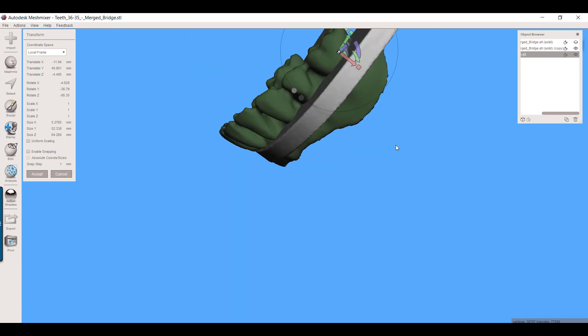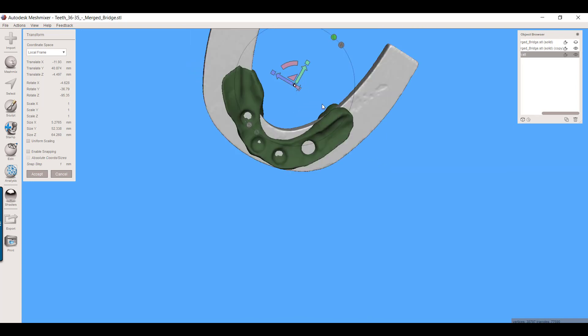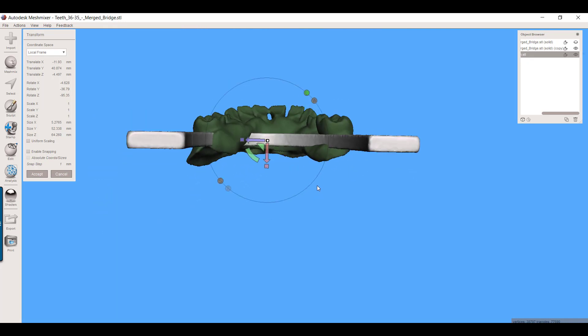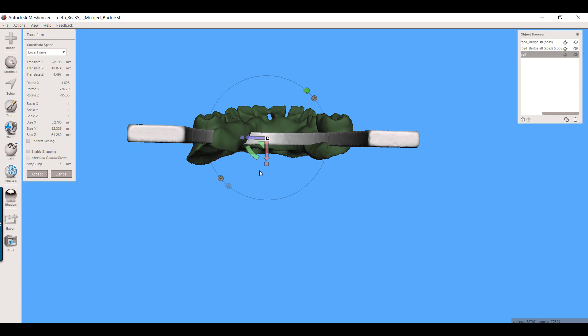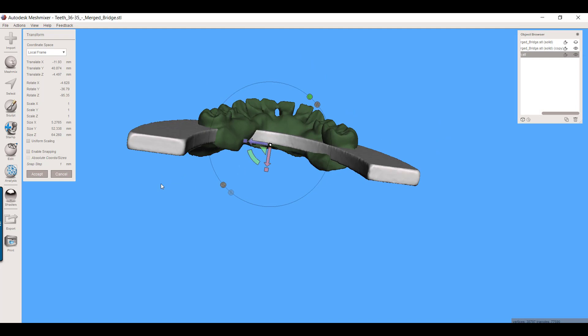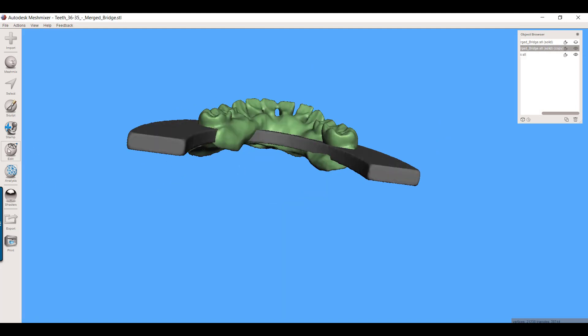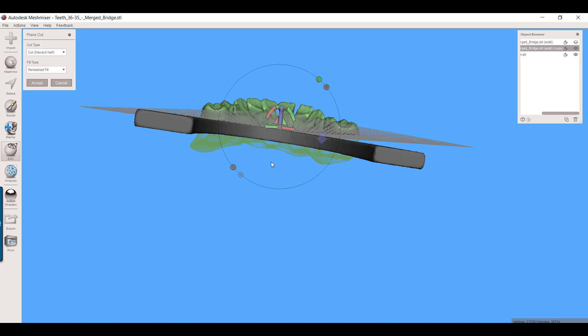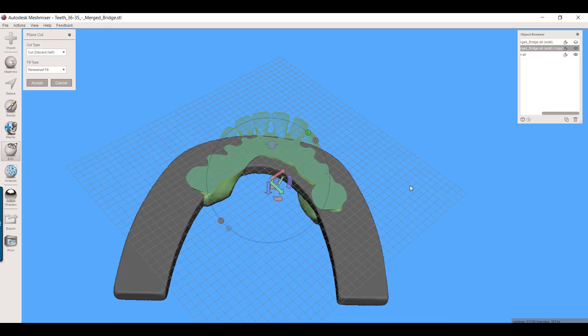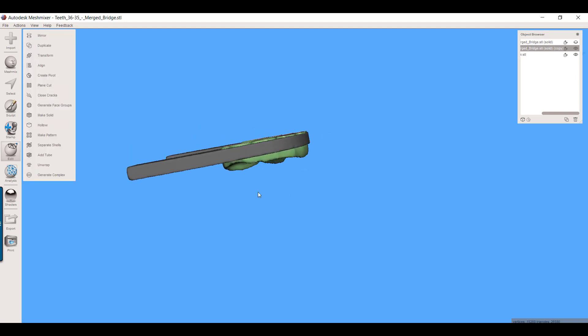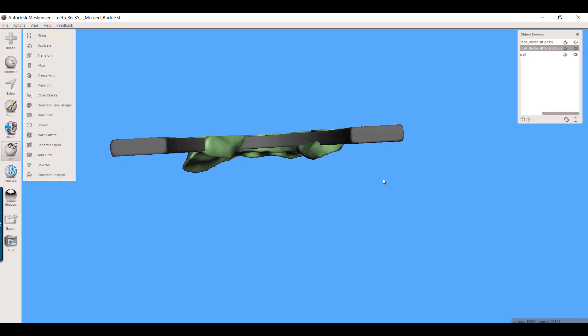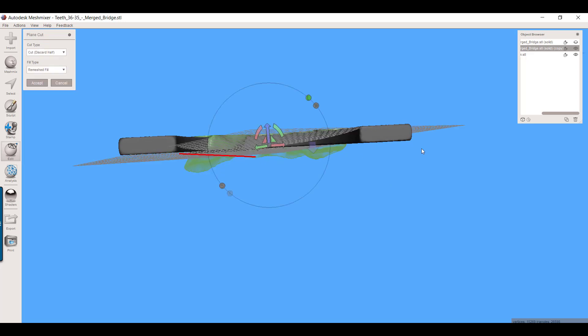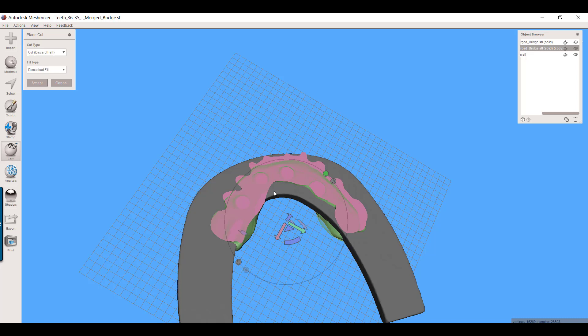I've maximized my material here. Now what I want to do, since my Trilor bar is in the biggest bulk of material for this shrunken thing, is now I'm going to use the plane cut. So let's select this model and edit plane cut, and I will look right along parallel to this Trilor material and go just above that. So you see what I've generated there. It's just ever so slightly taller than the Trilor material. Let's do that again for the bottom. So plane cut, just ever so slightly larger, and we want to flip this. We want to keep the middle section that coincides with what you're seeing here.